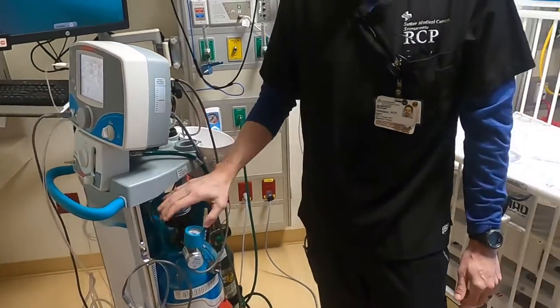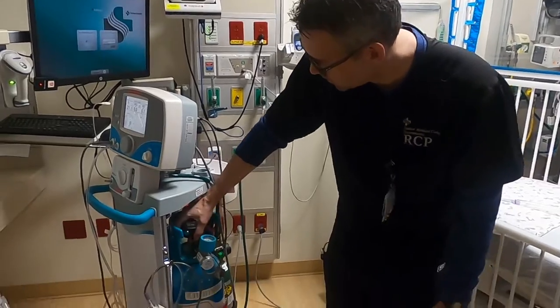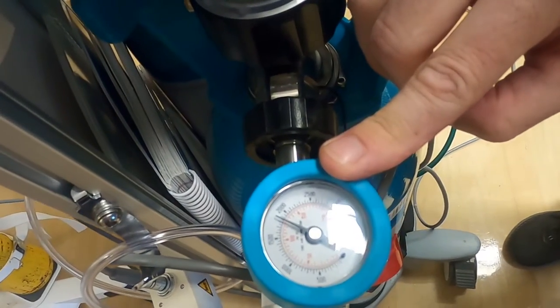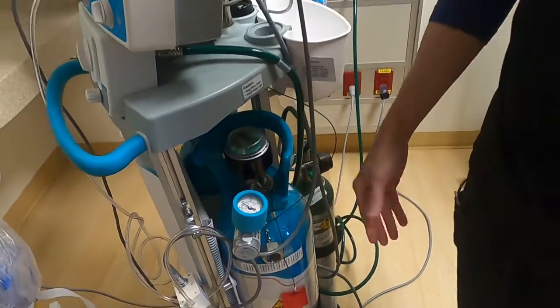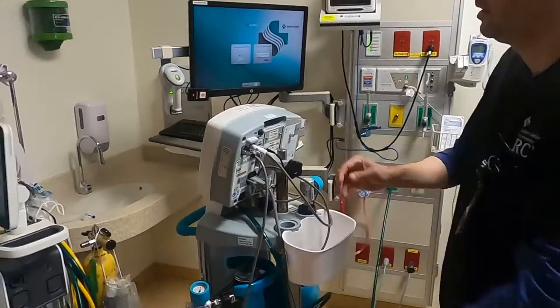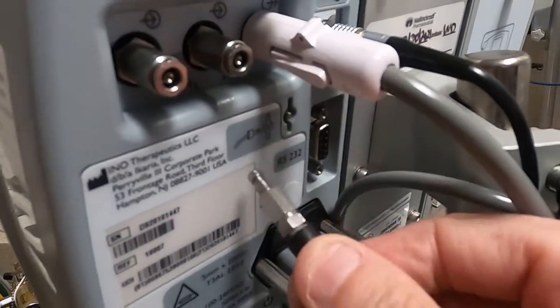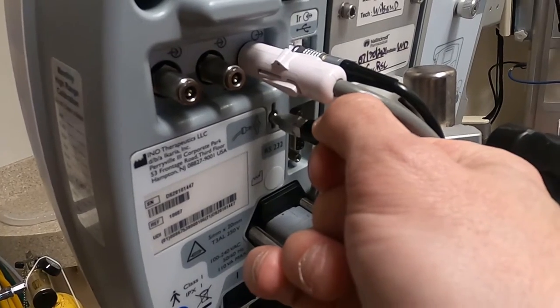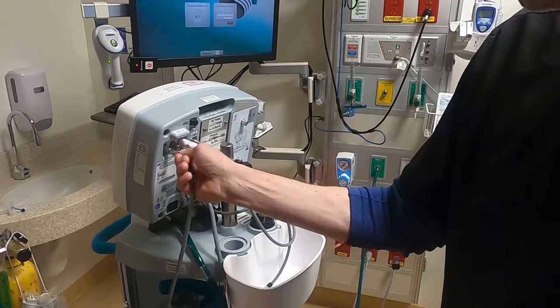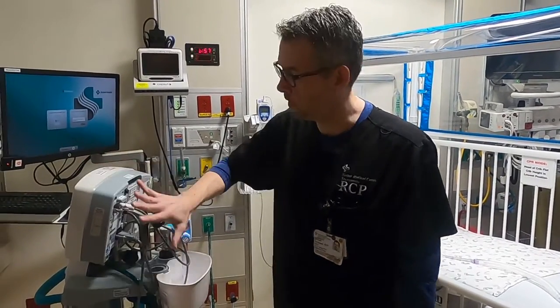When getting ready to set this up — tank on, regulator on, it's plugged in — you should pressurize the tank. Turn it on and turn it off real quick. Now you can see we have about roughly 1800 in our tank, which is important. You want to know how much you have and how much you're using during your shift. Before putting it on the patient, we're going to purge it. Take the injector out, push the small purge piece in — it will make a noise. Hold your breath when you do that because that's nitric coming out. That purges all the nitric that's been sitting in there so there's not NO2 buildup, making it safer for the patient.